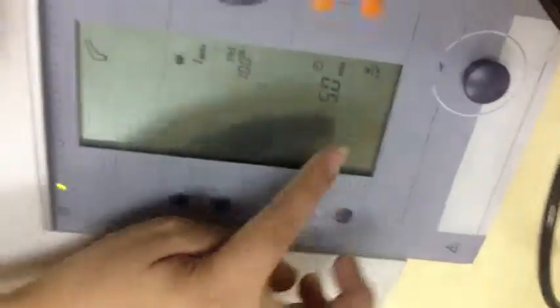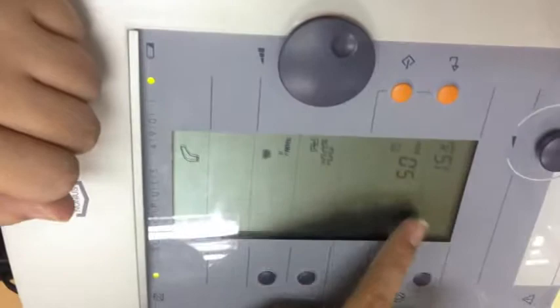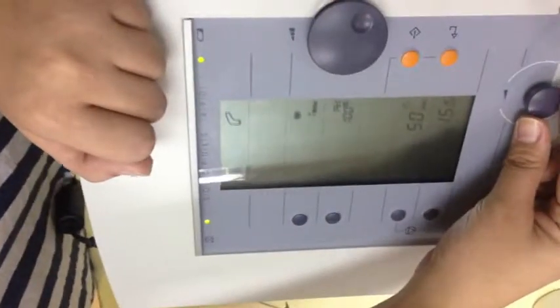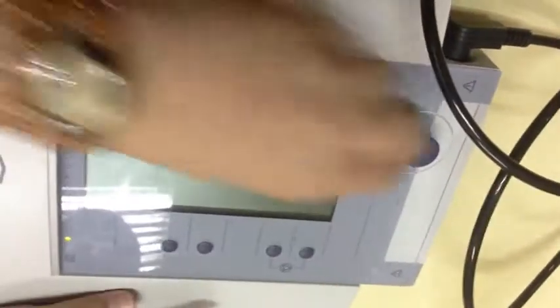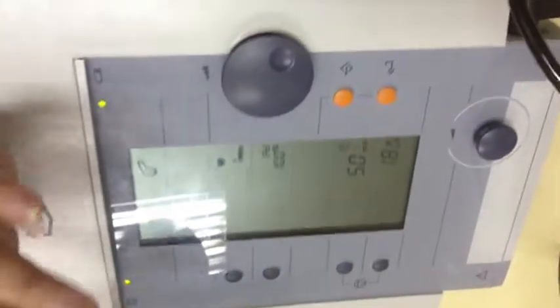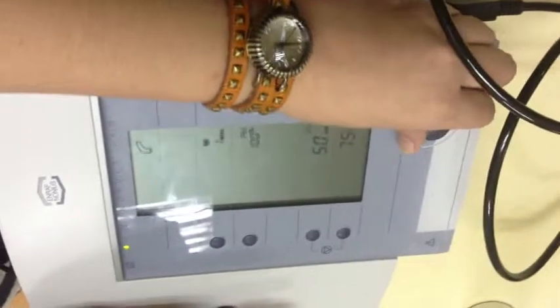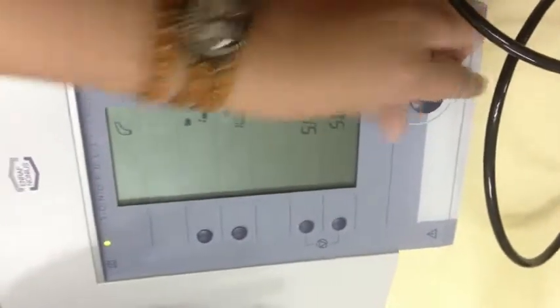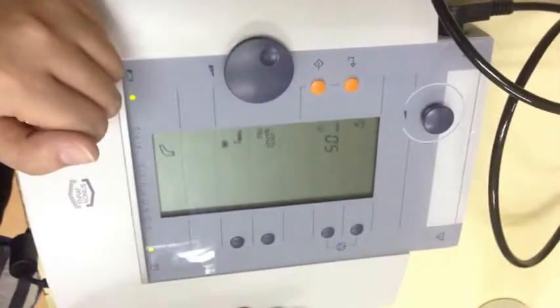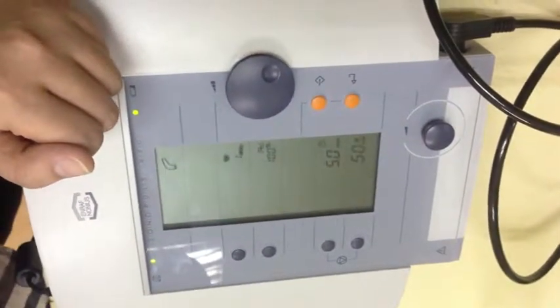Yes. And then, yung intensity, so nakita niya, nagbe-blink yung intensity. So, that means na pwede natin siyang i-adjust. Okay? So, yung intensity again is adjustable using this smaller knob. Usually, the application of ultrasound, especially for chronic cases, ang pinaka-optimal is 1.5 watts per centimeter squared. Okay? Pero we can go as low as 0.5, especially kapag acute yung cases. Okay? So, mas acute and mas delicate yung case, usually we use lesser intensity.